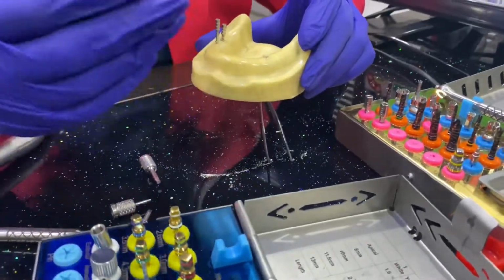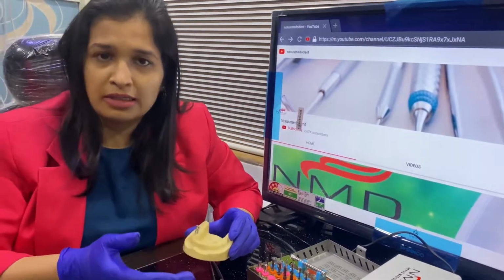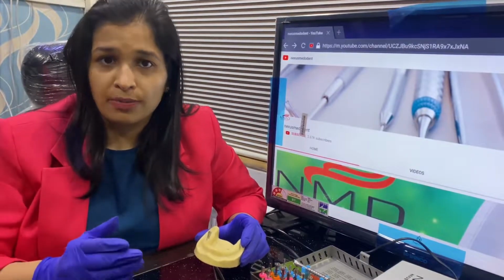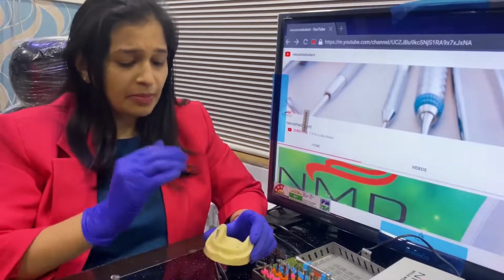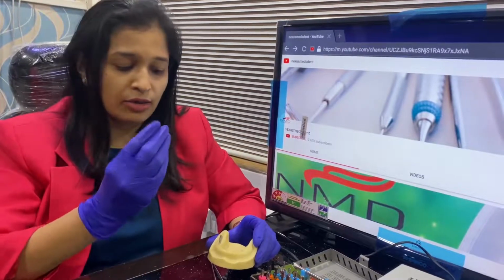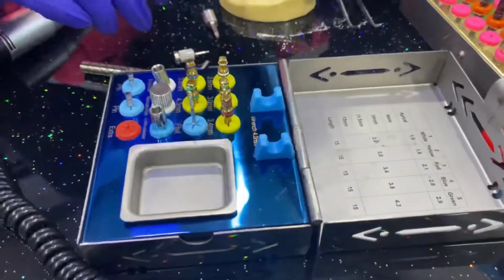At the end of it, again, I must tell you that the patient has not come for an implant. The patient is coming to you for a tooth, and once you place an implant in the right position, while you are taking the impressions or giving the crown, prosthetically your work becomes much simpler. So for that reason, it's always better that you place the implant in the right 3D position where the tooth can be right in the center. So these are the paralleling pins which I'm keeping back. So this is all about the kit.